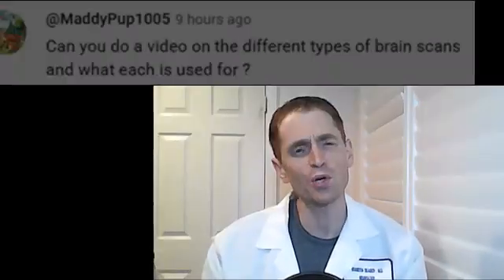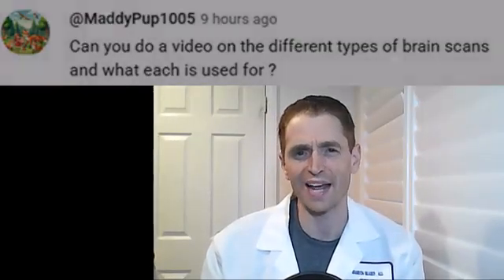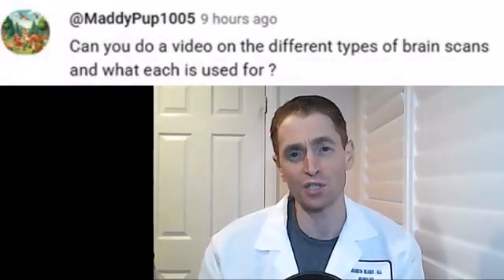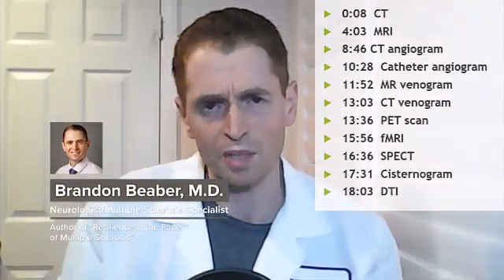Maddie Pup asks: can you do a video on the different types of brain scans and what each is used for? Sure thing, Maddie. And here are the timestamps if you want to skip ahead. We'll start with computed tomography, or a CT scan or CAT scan of the head.